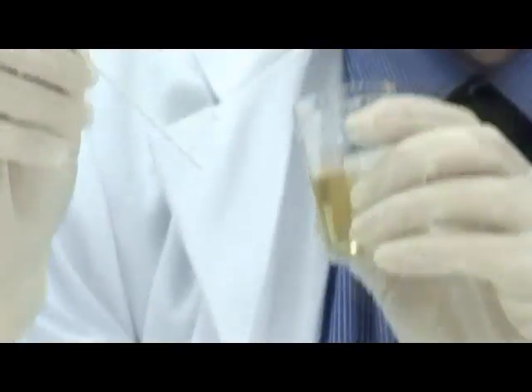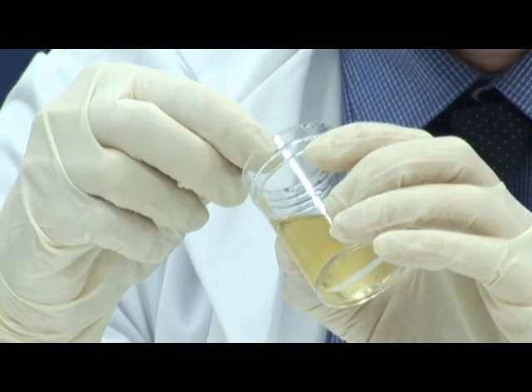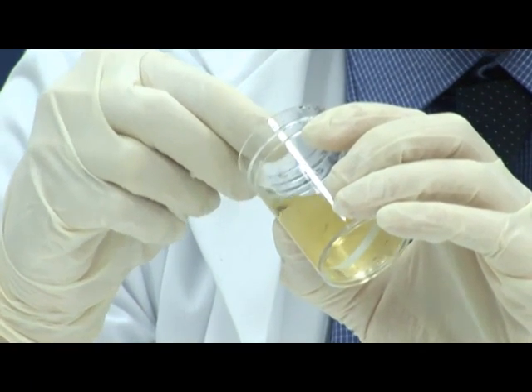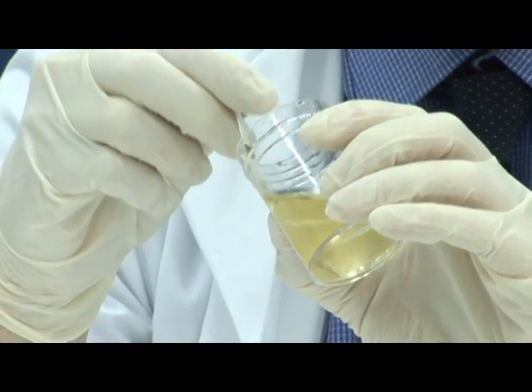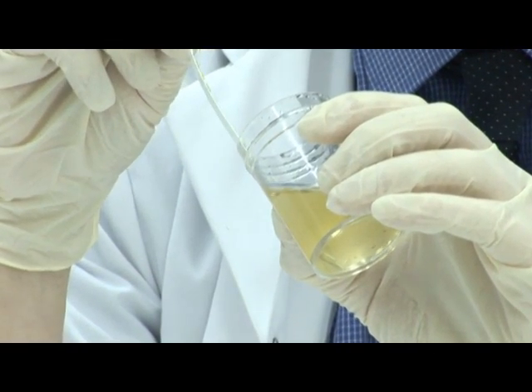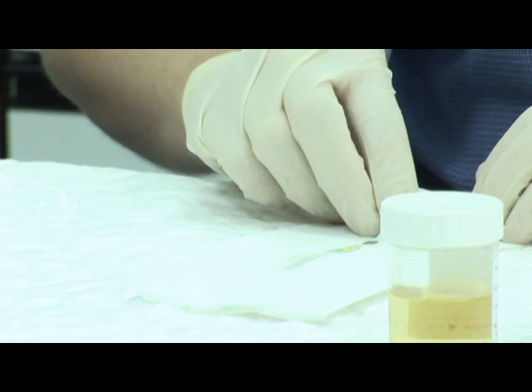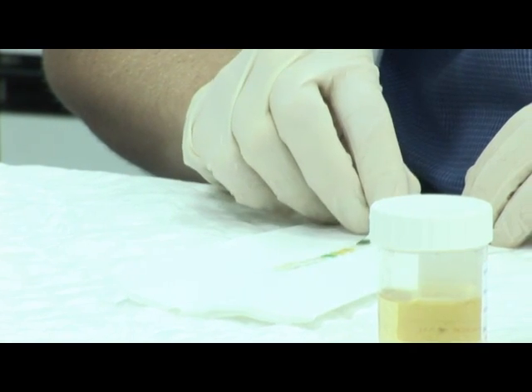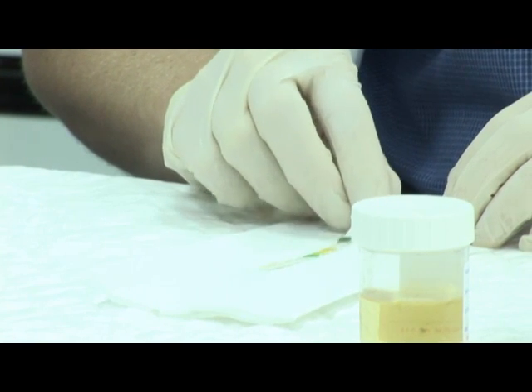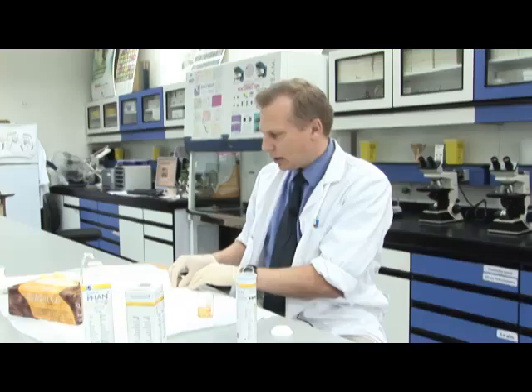So basically we have a urine sample here. We insert the strip into the urine sample making sure that it's thoroughly immersed and that all the squares are wet so that the chemicals will react. It looks like we're already getting a chemical reaction. So first I'll blot off the excess urine on the strip onto the paper and at most it should take about a minute.